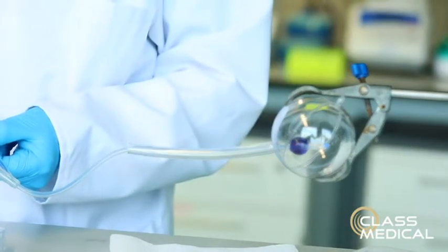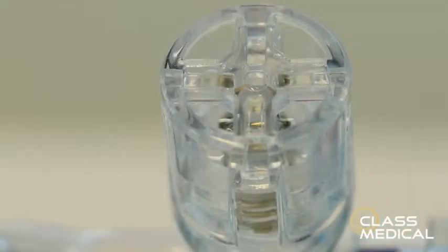You can see the balloon in the bladder inflating. No leakage from the valve.